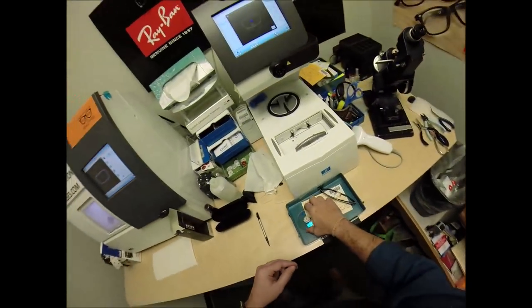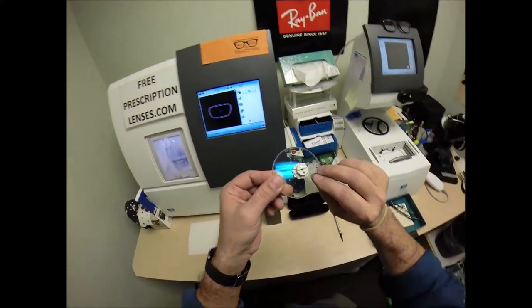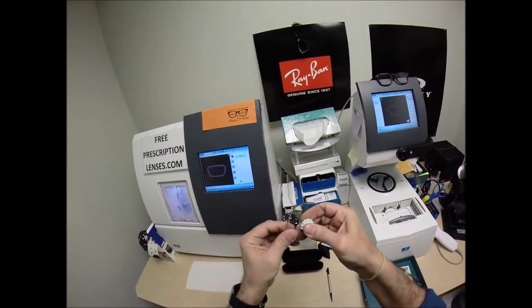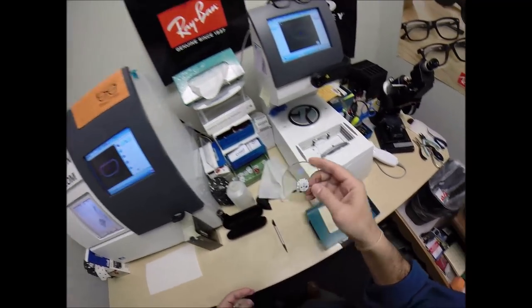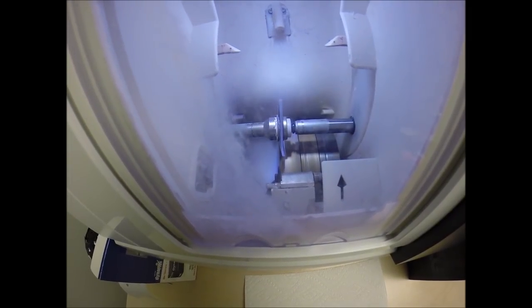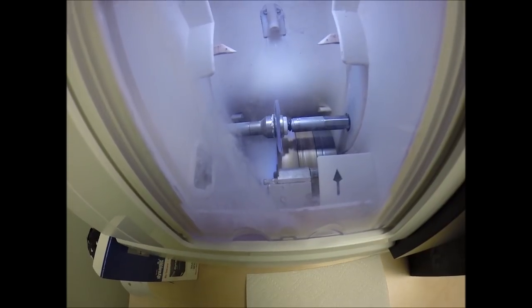Now water will spray onto this lens for the last 20 seconds just to wash away any optical debris that you see beginning to form on the edge of the lenses. So as I mentioned, your lenses are made out of polycarbonate. Polycarbonate is 40% thinner and lighter than regular plastic. They are virtually unbreakable. These are high-impact ballistics-grade lenses. The same lens materials that our soldiers wear overseas in combat zones to protect their eyes from shrapnel and flying debris.